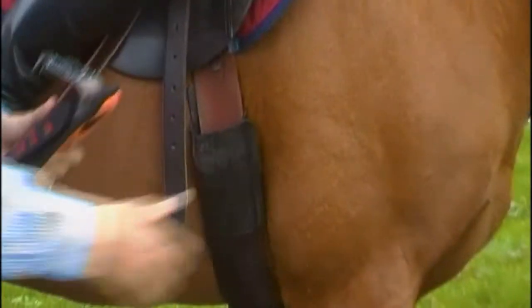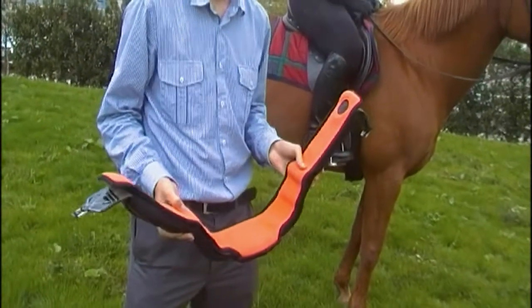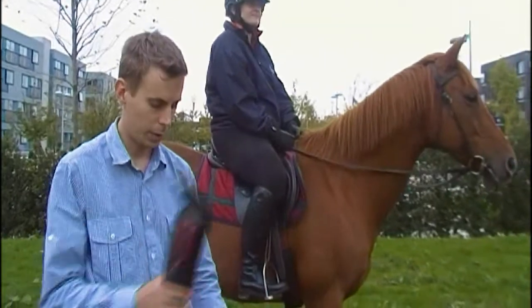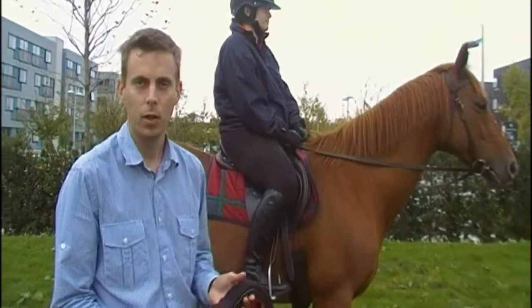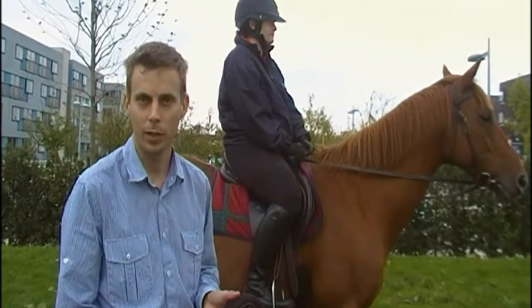Combined within this package is a number of biometric sensors and other sensors to monitor the workload of the horse. We have GPS, ECG, and accelerometers combined with temperature and environmental sensors. This allows the trainer to have a much more objective measure of the horse's workload and also its response to that workload.